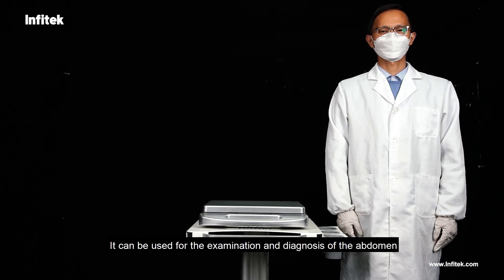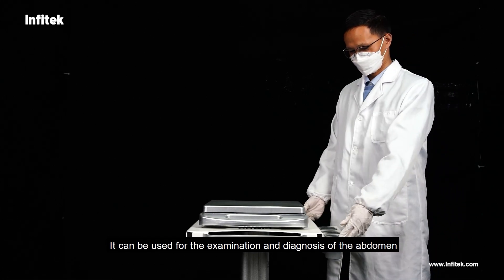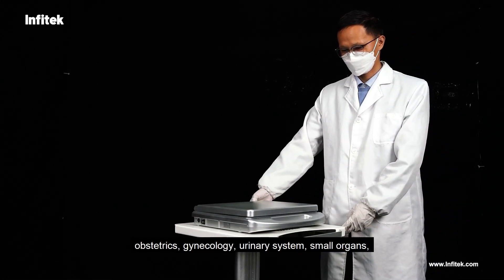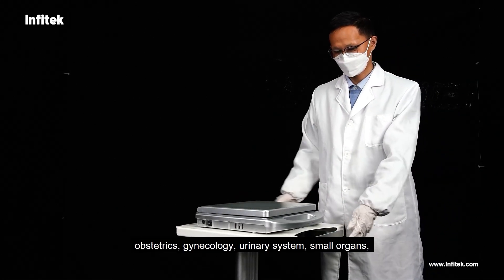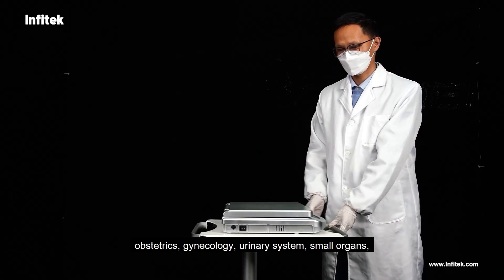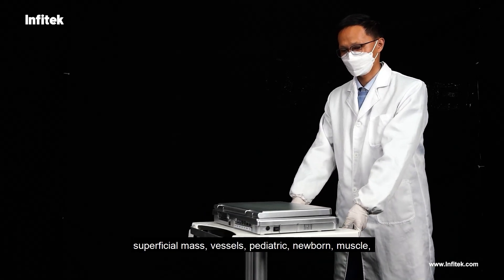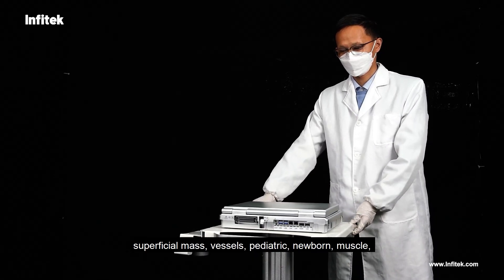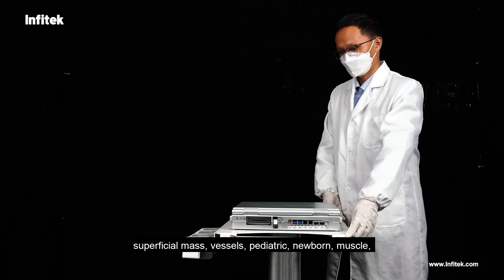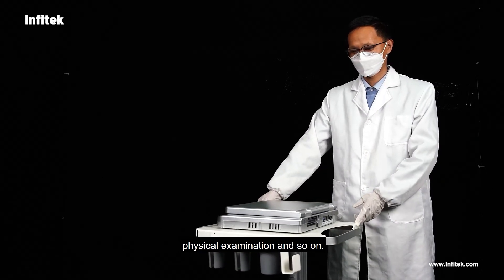It can be used for the examination and diagnosis of abdomen, obstetrics, gynecology, urinary system, small organs, superficial mass, vessels, pediatrics, newborn, muscle, physical examination, and so on.